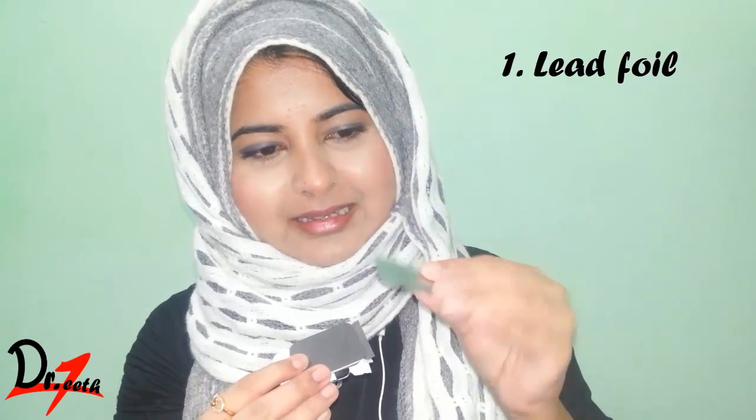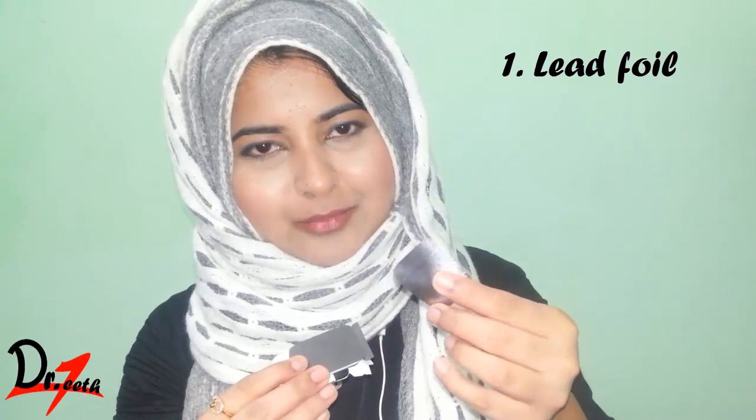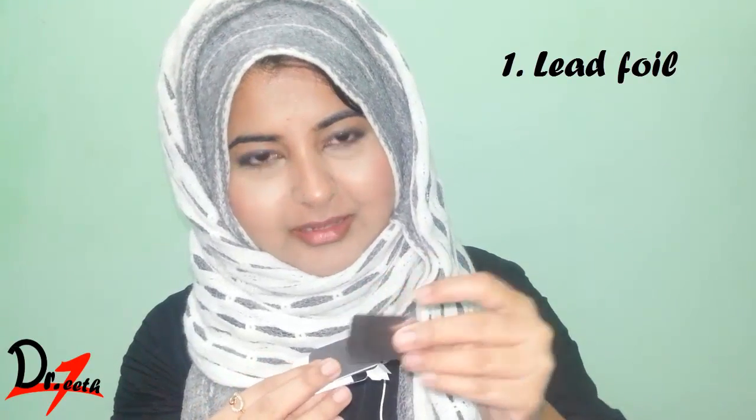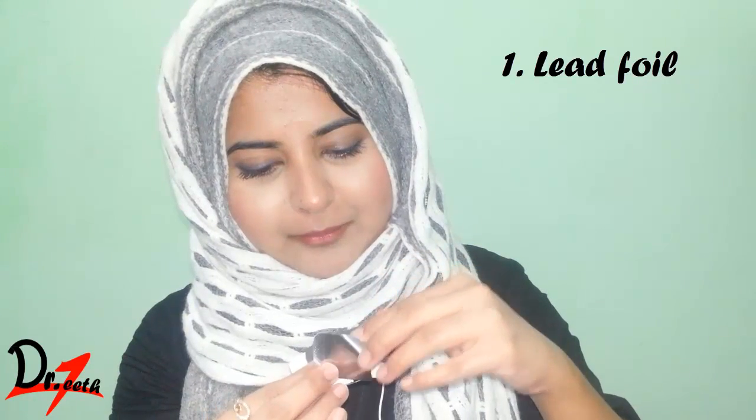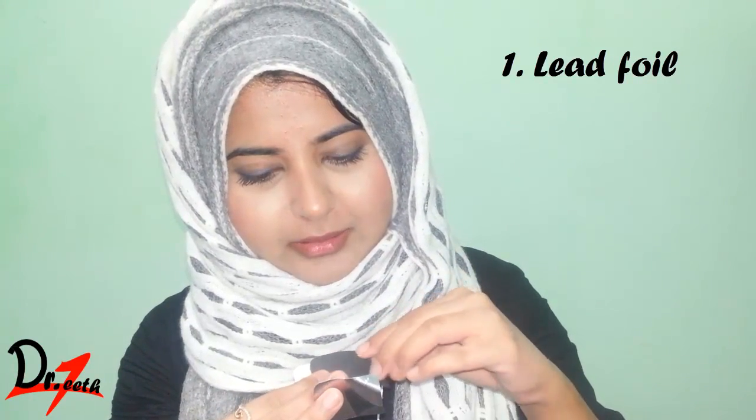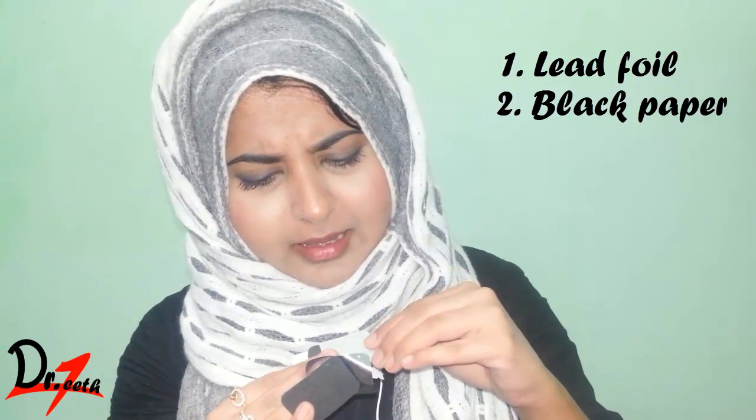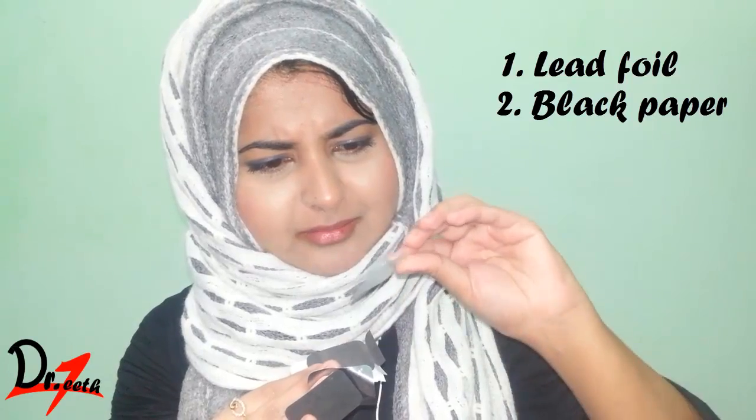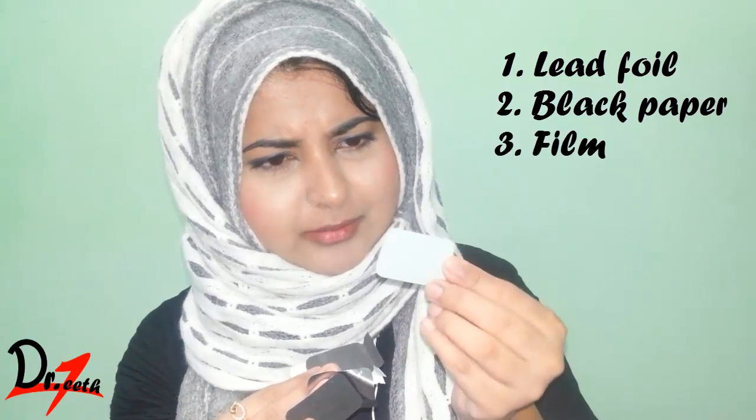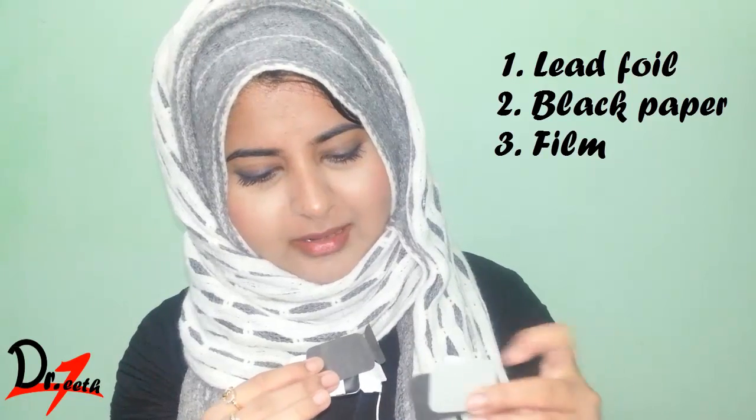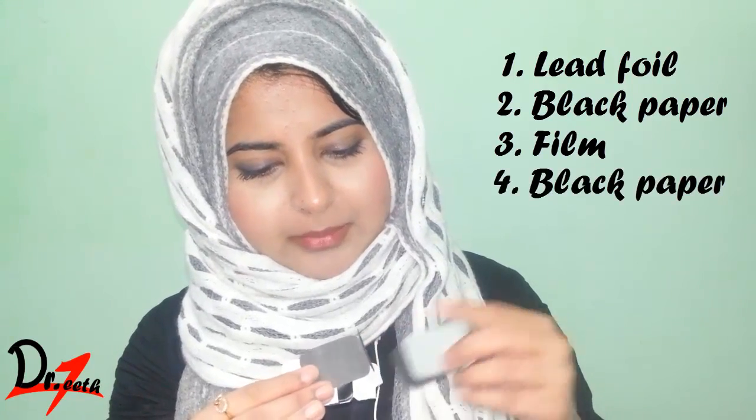Oh my god, it's not opening. Okay, okay. So as we open, we find this black thing here. Okay, I'll just take it out and see what else we have inside.